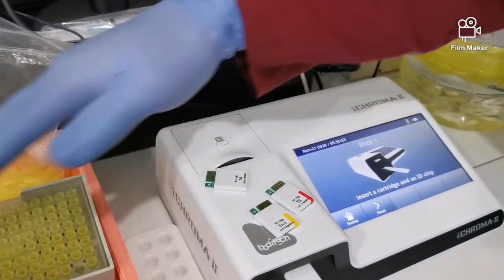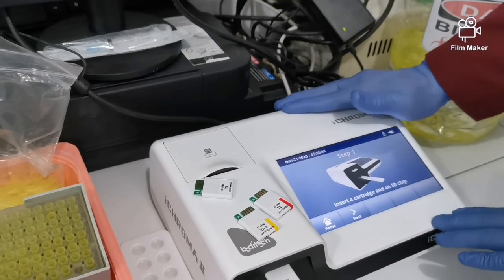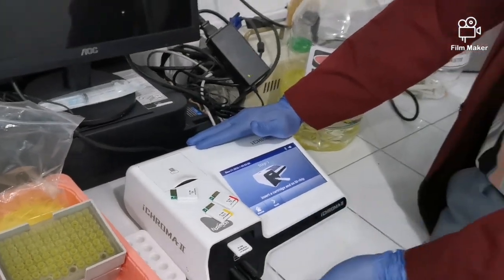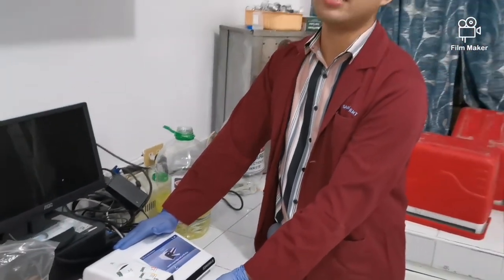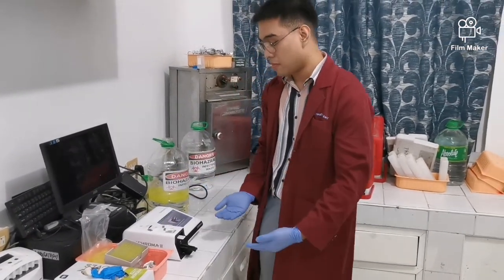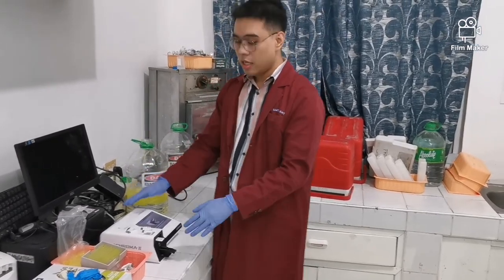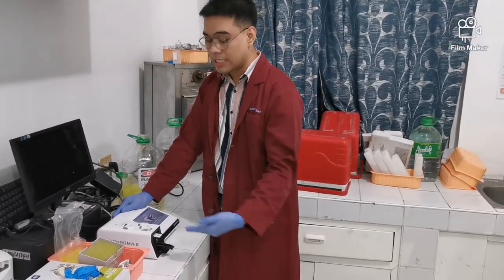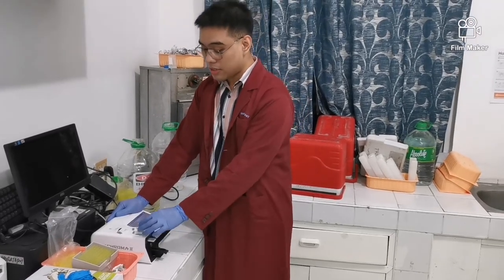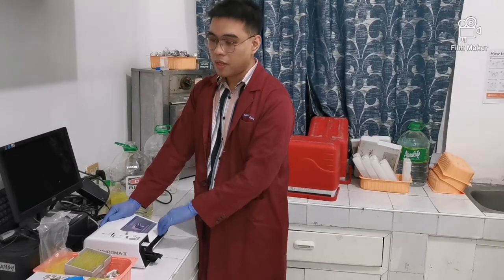Pero ayun, marami pang test na kayang gawin nito. Pero yung disadvantage lang nito, single test lang siya, okay? Hindi siya pwede for batch testing. Yung batch testing kasi dapat marami na ang ilalagay para minsanan na sana. Ito, time consuming siya kasi nga isa-isa lang. Depende pa kung ano yung test na require. So ayun, immunochromatography siya. Pero mabuti na lang din at meron, okay?